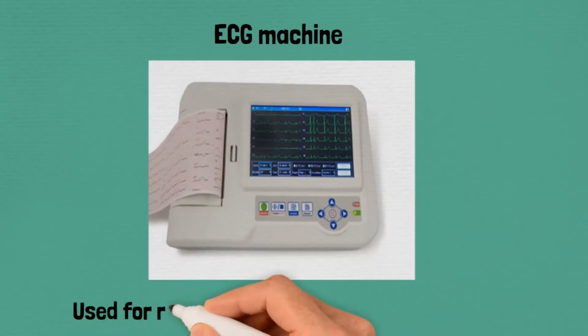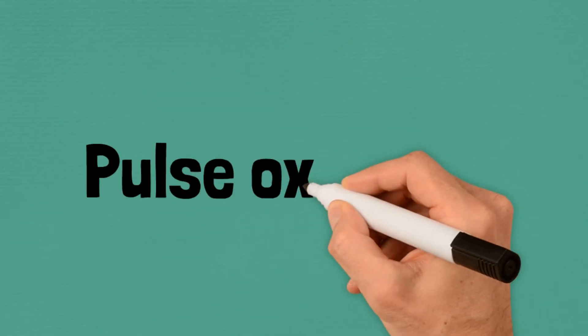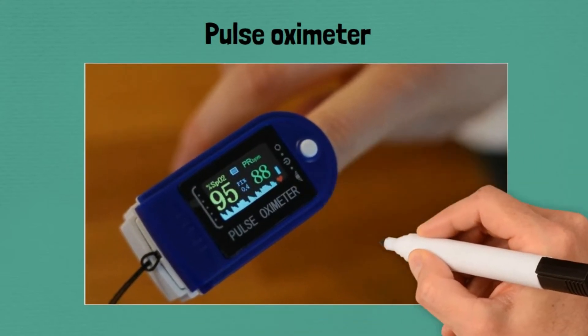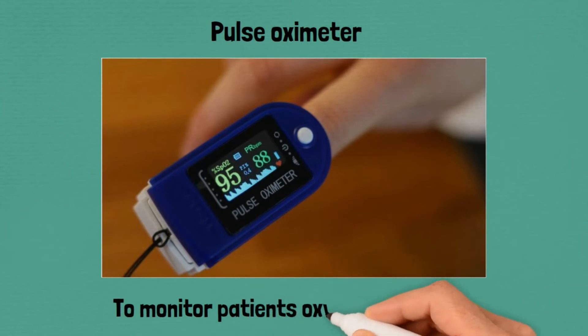ECG machine, used for recording electrical activity of the heart. Pulse oximeter, used to monitor a patient's oxygen saturation.